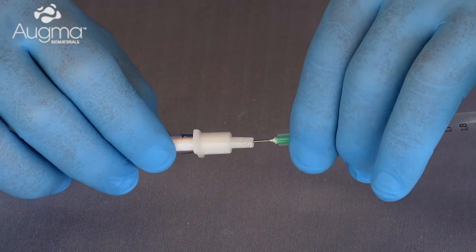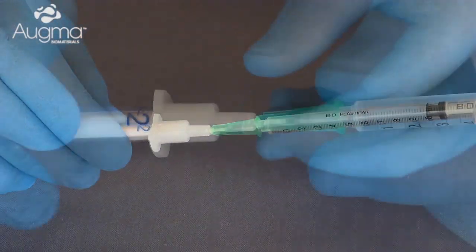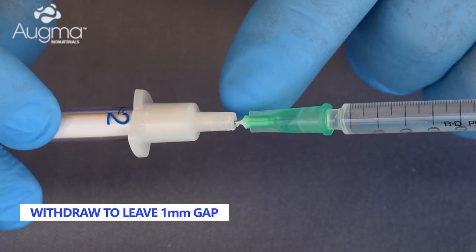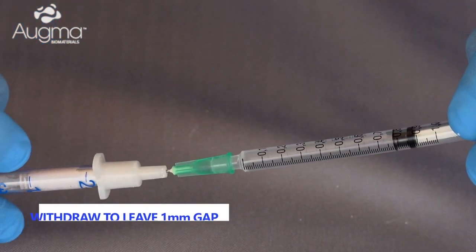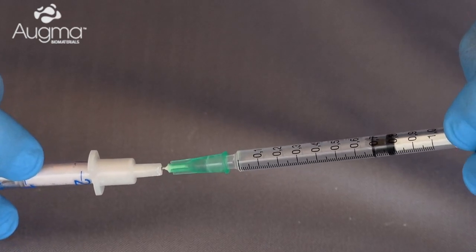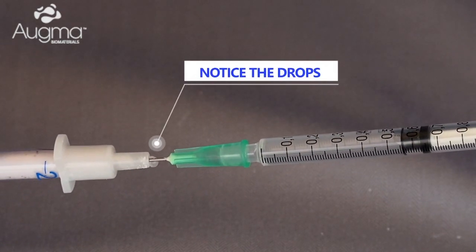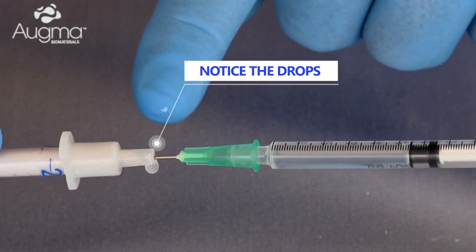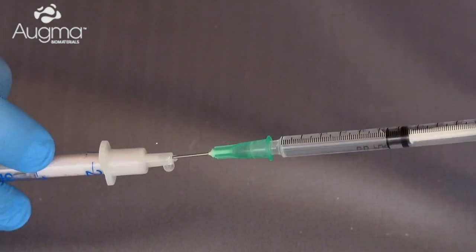We introduce the needle all the way down into the 3D Bond powder located within the driver. Afterward, we draw the needle back about one millimeter to enable liquid surplus to expel out. At this stage, we start to inject the saline into the powder of the 3D Bond until a few drops come out, then we detach the needle from the 3D Bond driver.